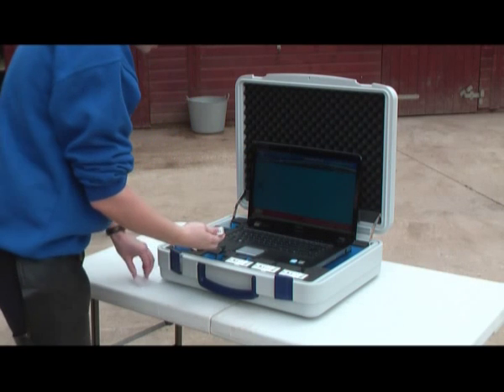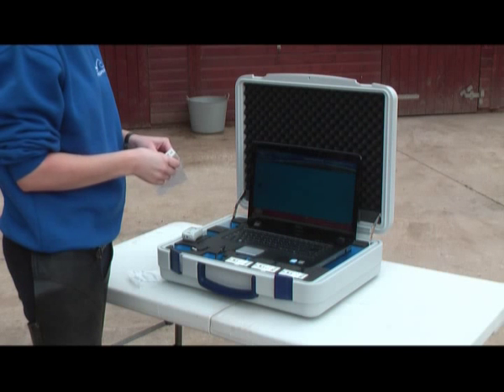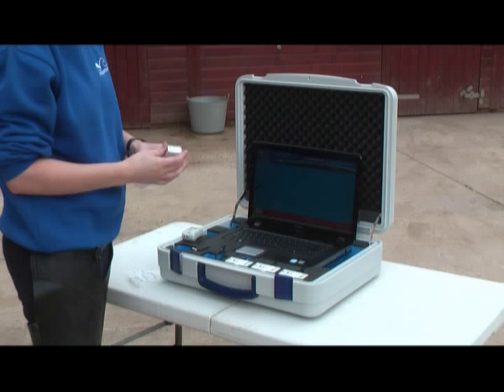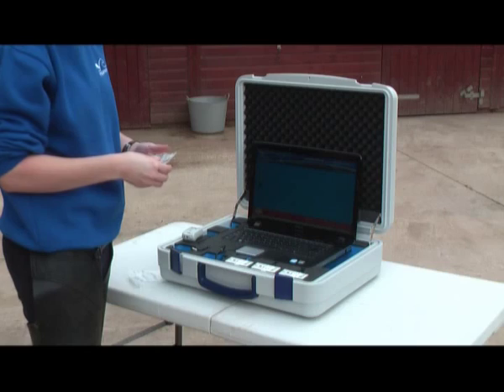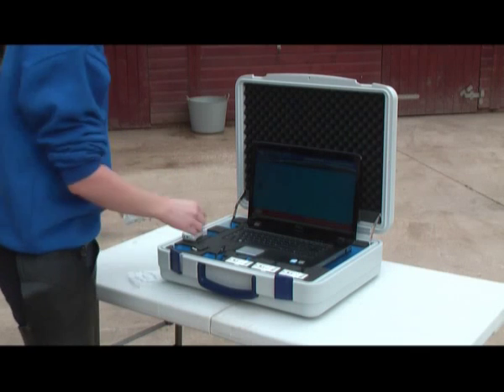What I am doing now is taking the sensors out and putting them into a clear plastic little wallet. This is done simply to protect the sensors from any minute dust or water, but it doesn't interfere with their function in any way.